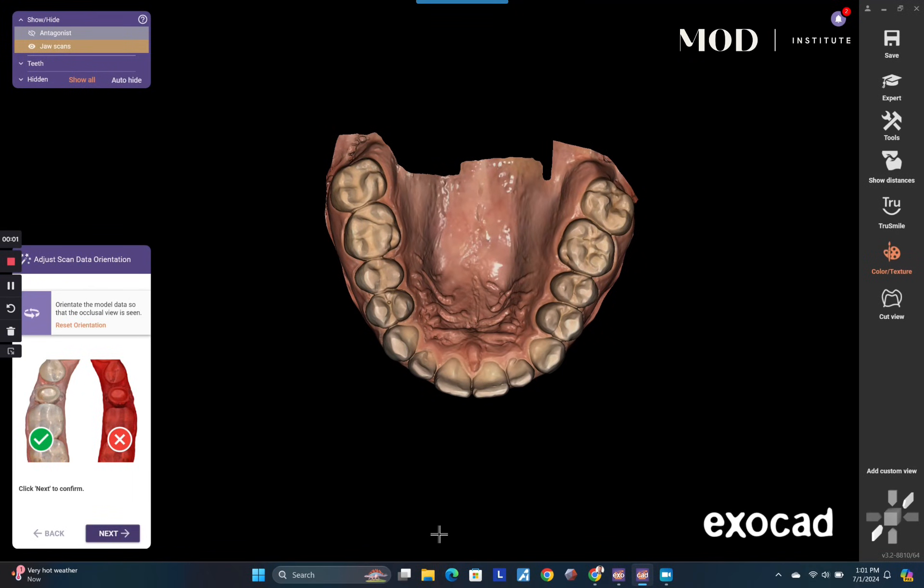How do we use a patient's natural teeth to create a trial smile or a no-prep veneer using Exocad? This is a really cool feature using artificial intelligence tooth segmentation to give the patient basically their same teeth with some slight modifications.